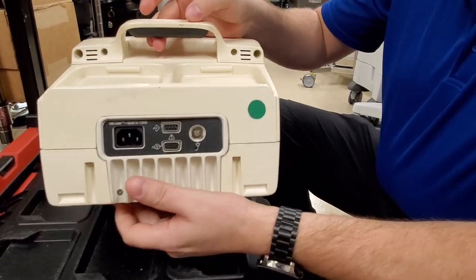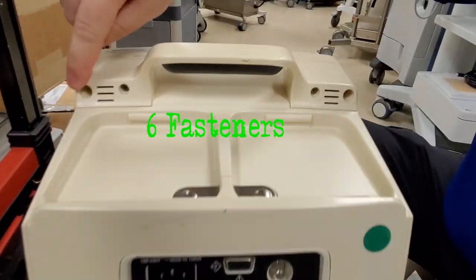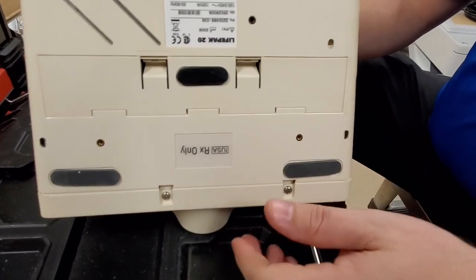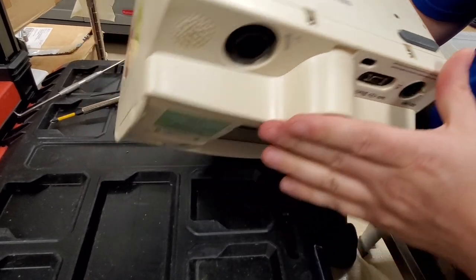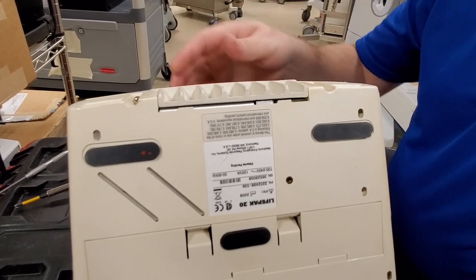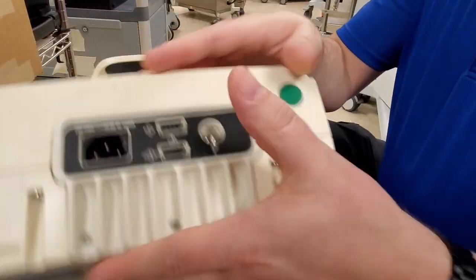Okay, the first thing you have to be aware of is that there are four fasteners. There's one here, one here. We have two right here and we have two more. Oh, let's see. Where are those guys? Right here. Right here and right here. So let's go ahead and start at the top.